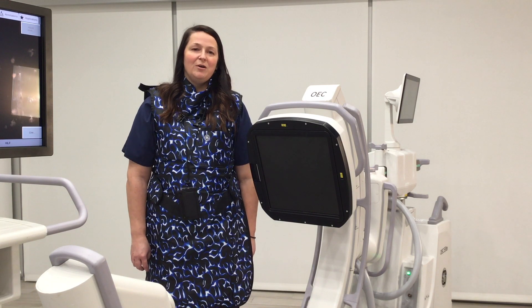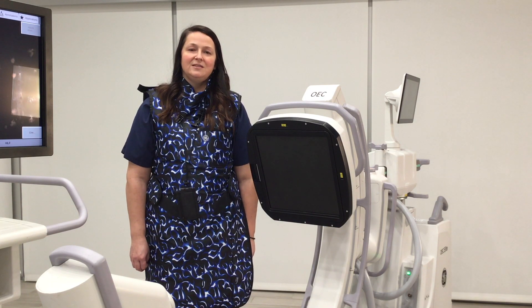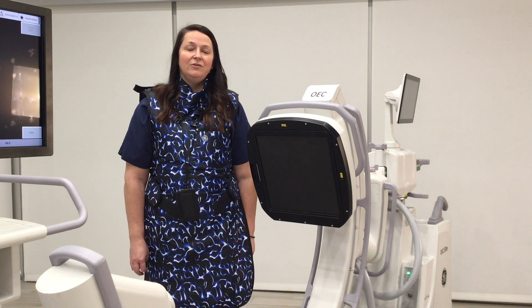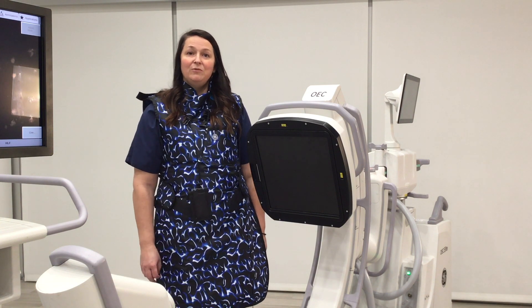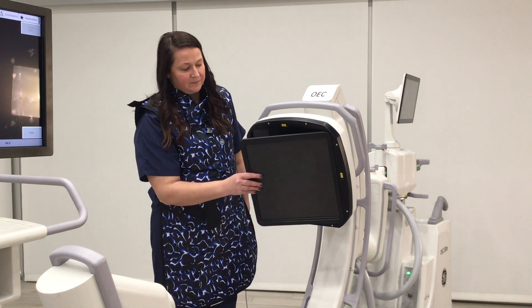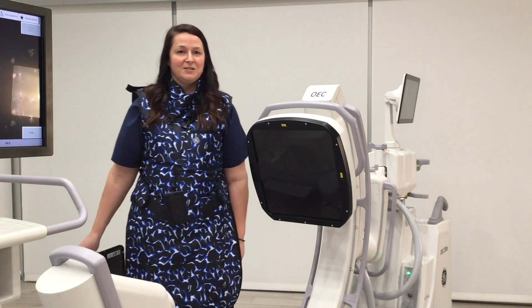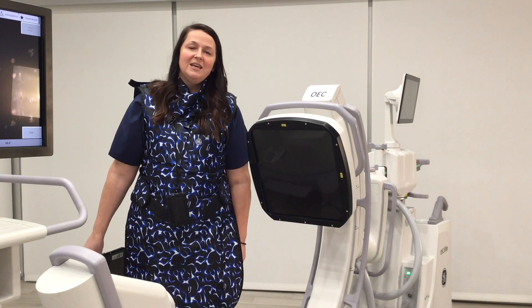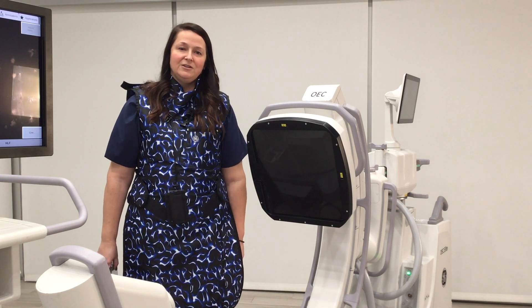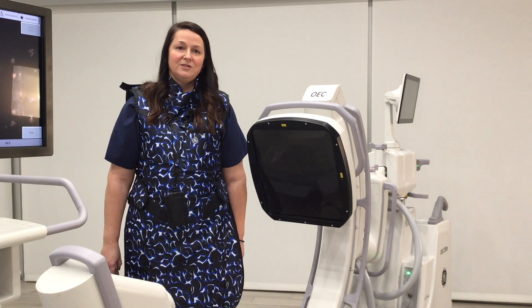When imaging small body parts or pediatric patients with a recommended thickness of 10 centimeters or less, you can, when available, remove the grid and simply store it somewhere safe. By removing the grid, you can utilize lower technical factors, therefore reducing the overall dose to the patient.